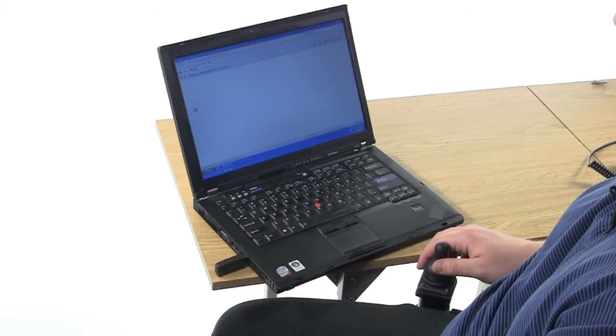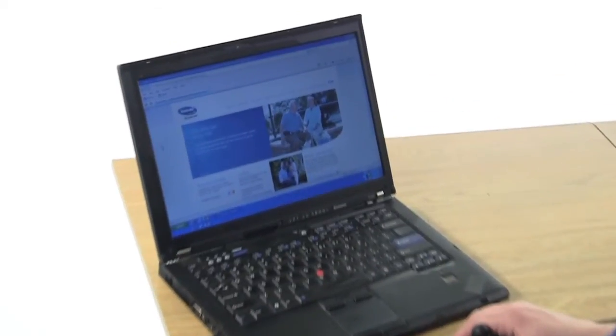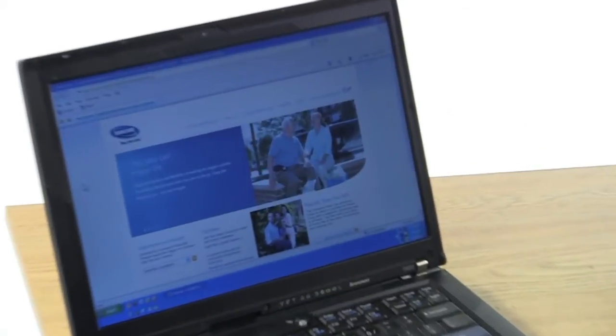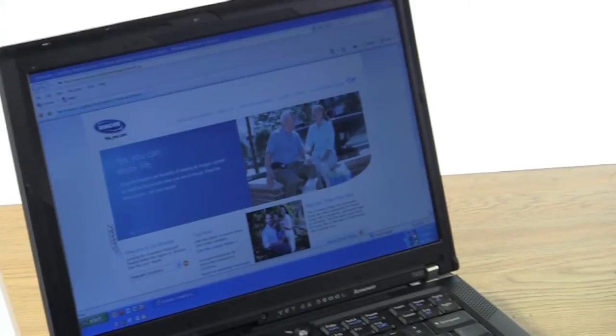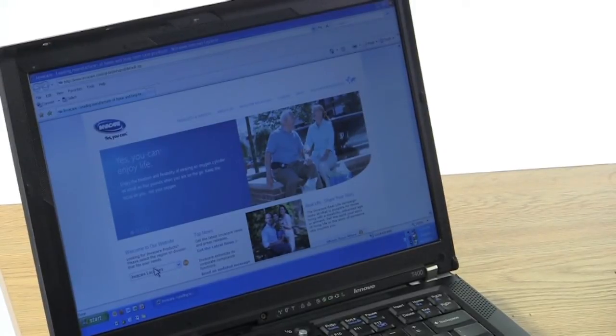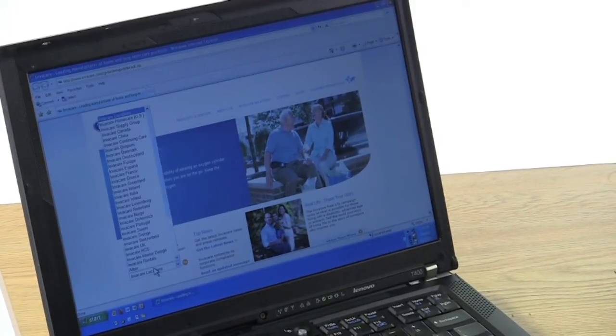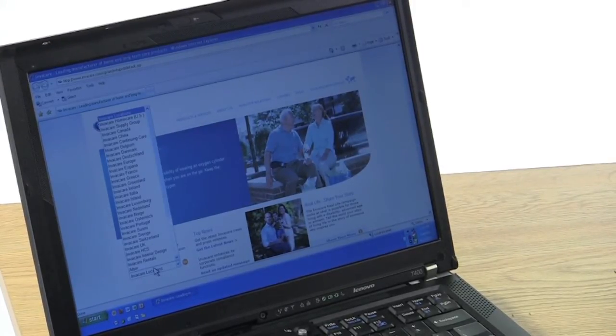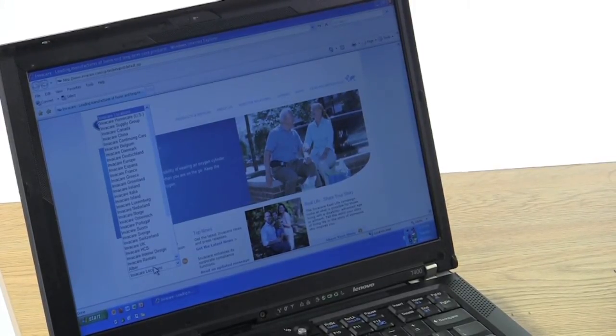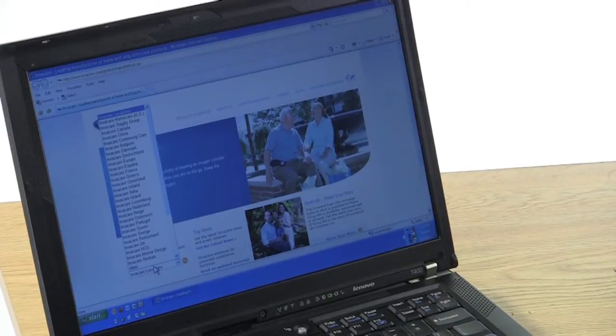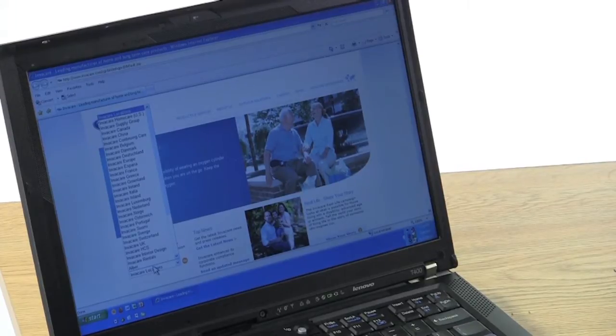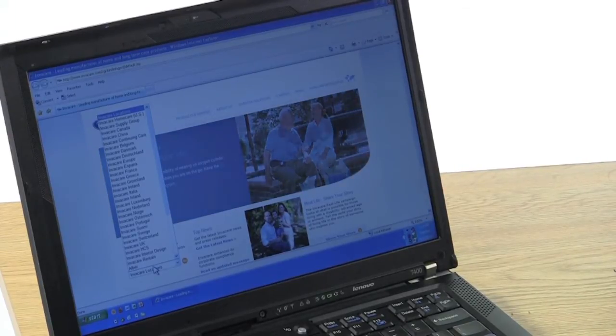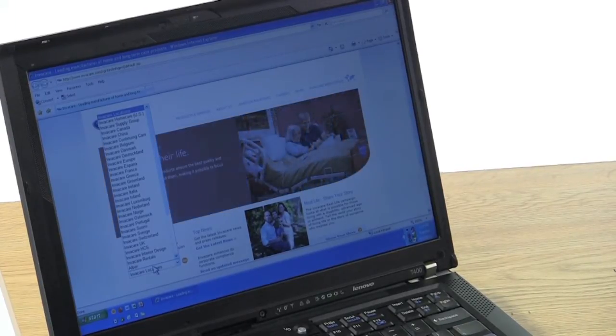With the Mark VI radio frequency or RF mouse emulator, the Invacare Power Wheelchair Driver Control can act as or emulate a computer mouse when using Mark VI expandable electronics version 1.8.0 or higher.